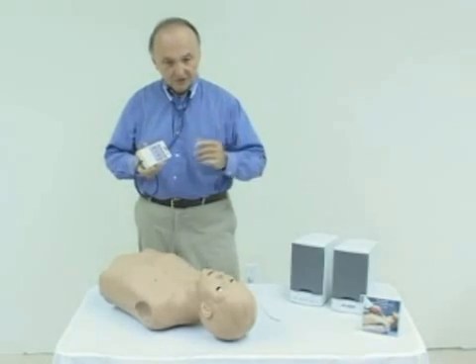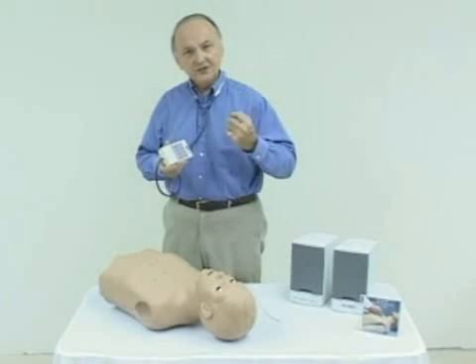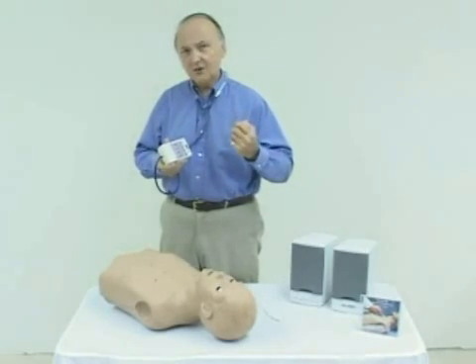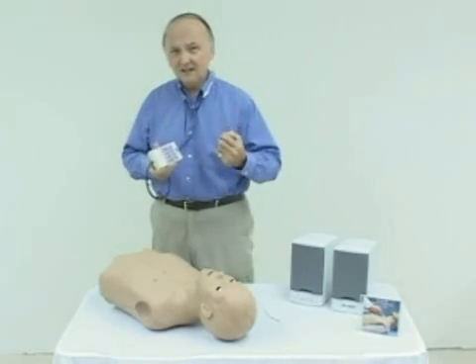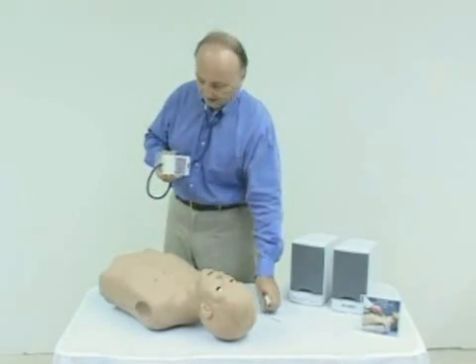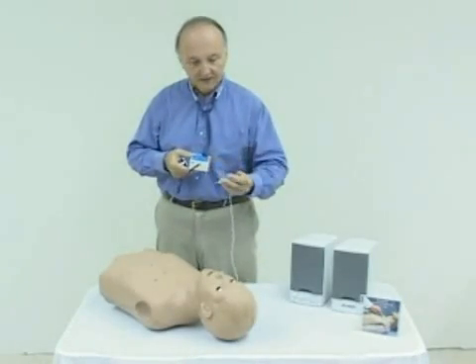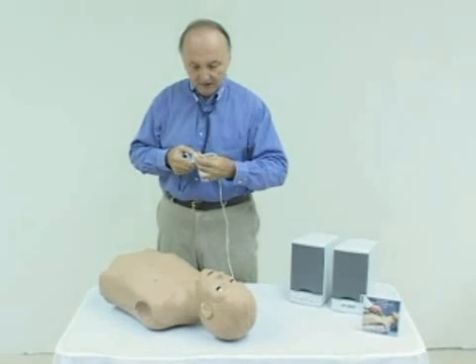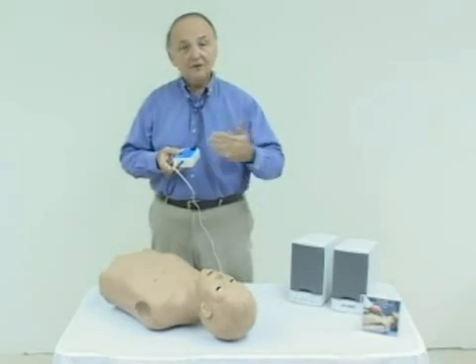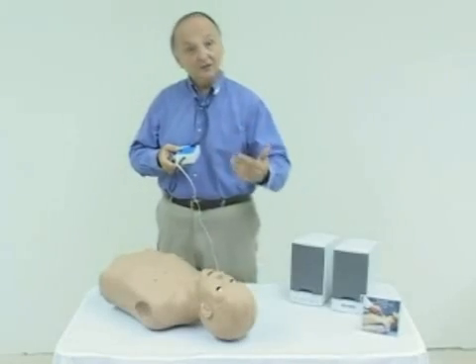You've probably always wanted to know: is the student hearing in the stethoscope what you think they're supposed to be hearing? The answer is yes. Our heart and lung sound device has a convenient plug-in so that everyone in the classroom can hear what the student is hearing — or not hearing.